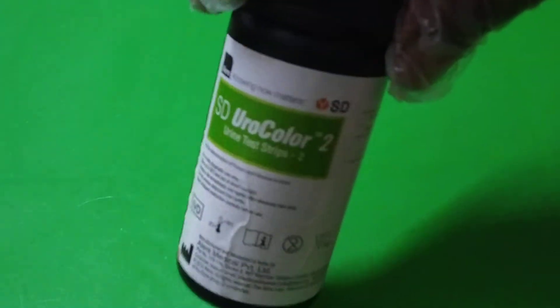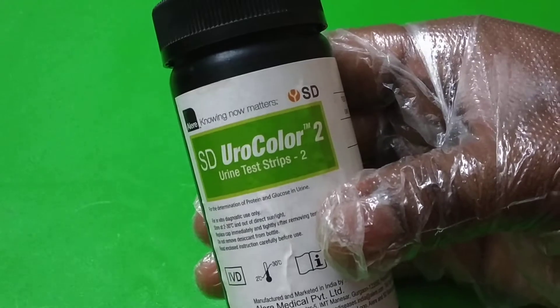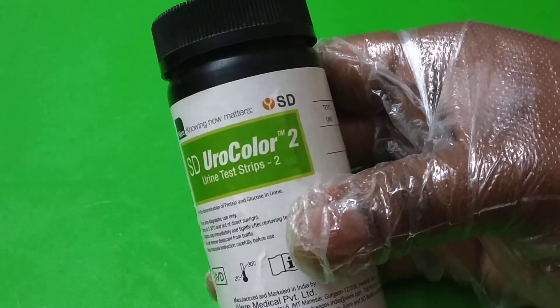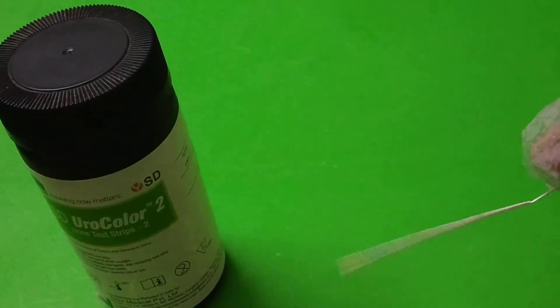Good morning everyone. Today I am going to show you how to detect the sugar in the urine. Here we are using the urine sticks, also called urine test strips or urine sticks. If you see the stick, it will look like this.